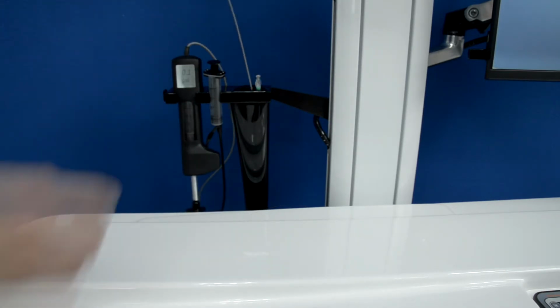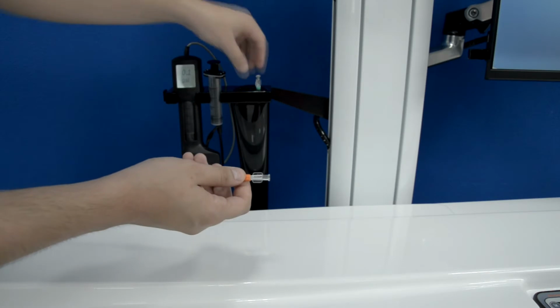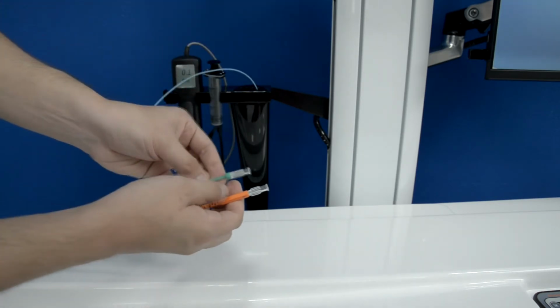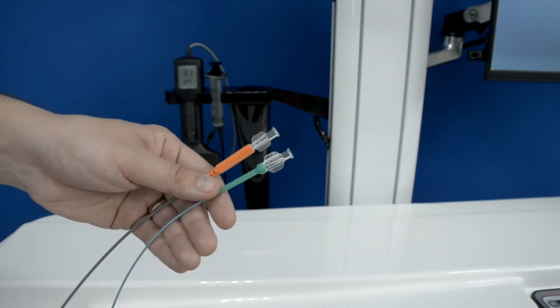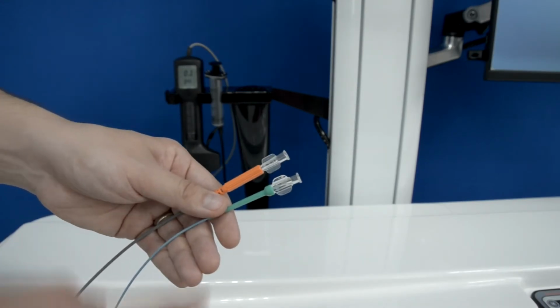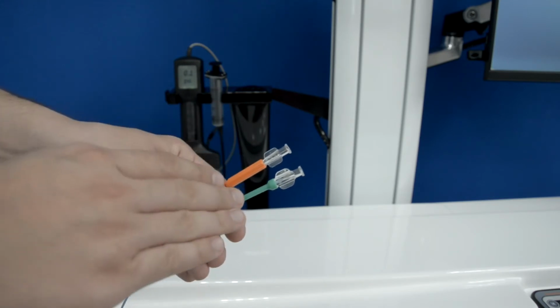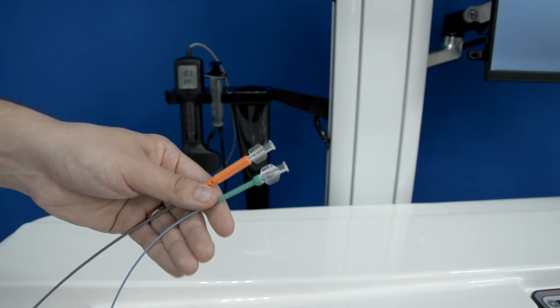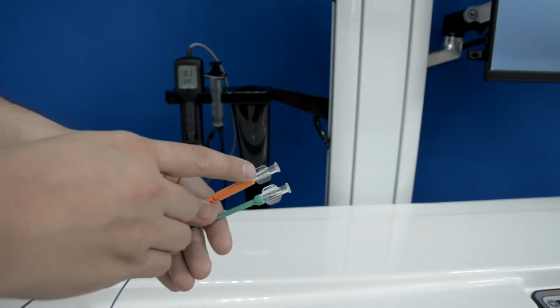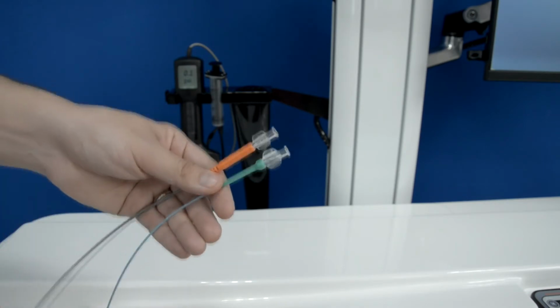And in the holder we also have our instrument imitators, which are the 7 French catheter and the 5 French catheter. The way we use our real instruments in the simulator, the 7 French and 5 French catheters, is they will be corresponding to different instruments in the software. And in the software you will see some instrument selection, and it will say 7 French, and some instrument selection as a hint it will say that you should take the physical 5 French.